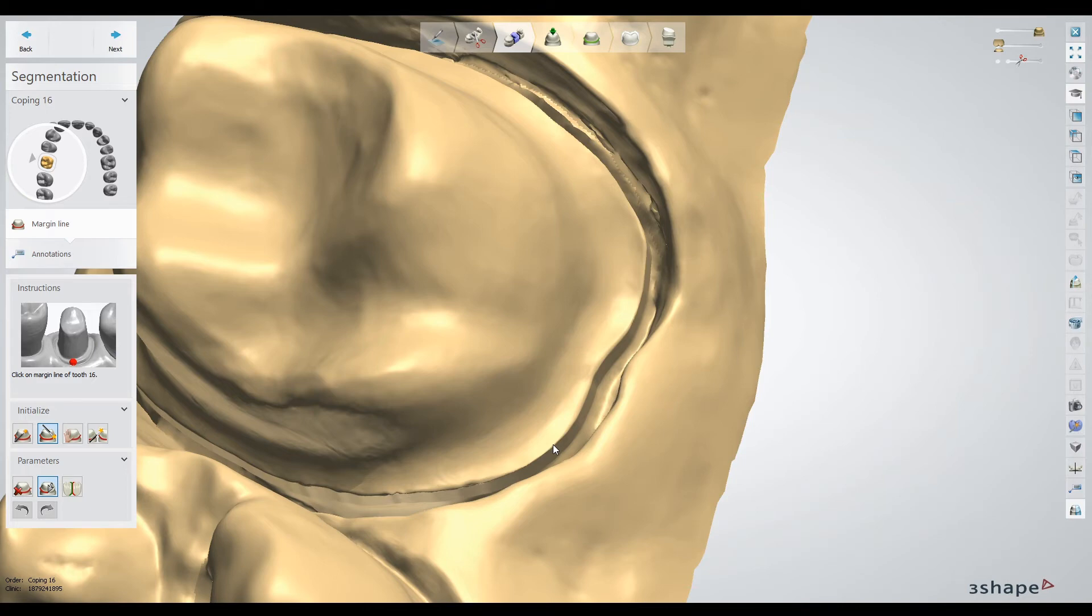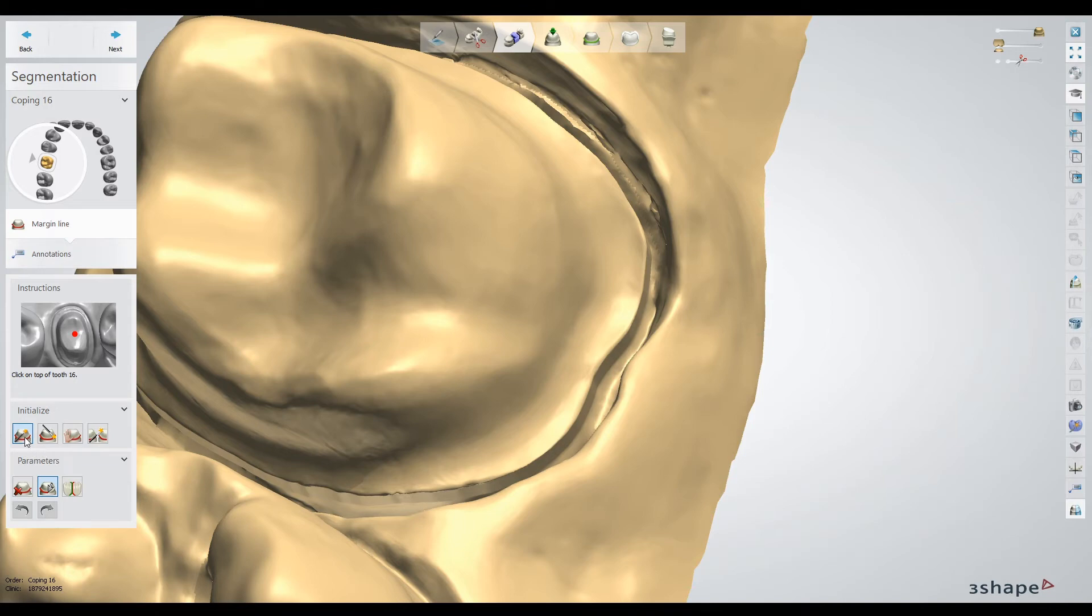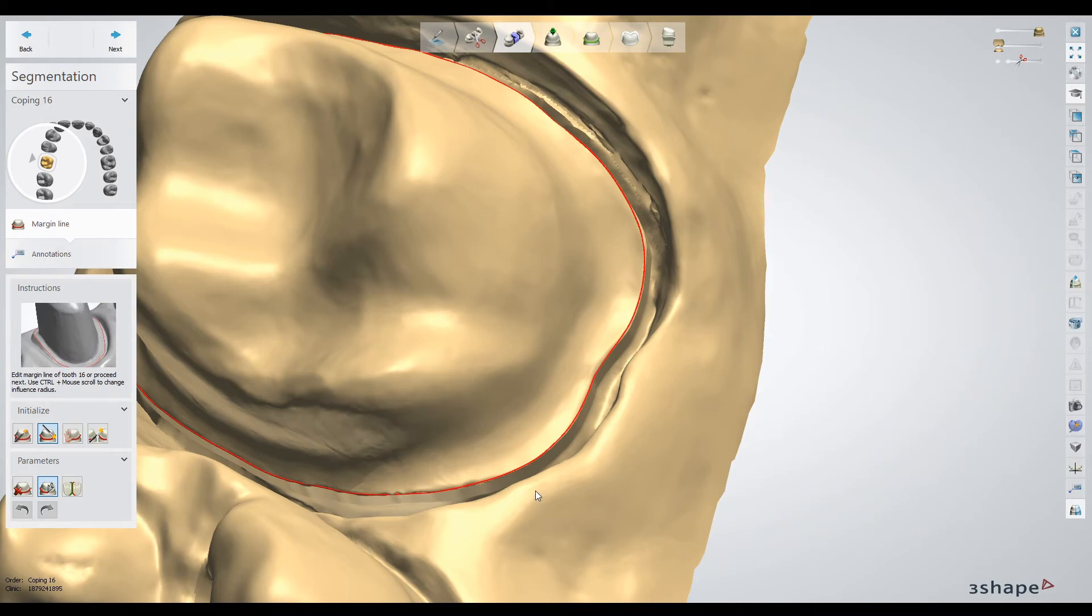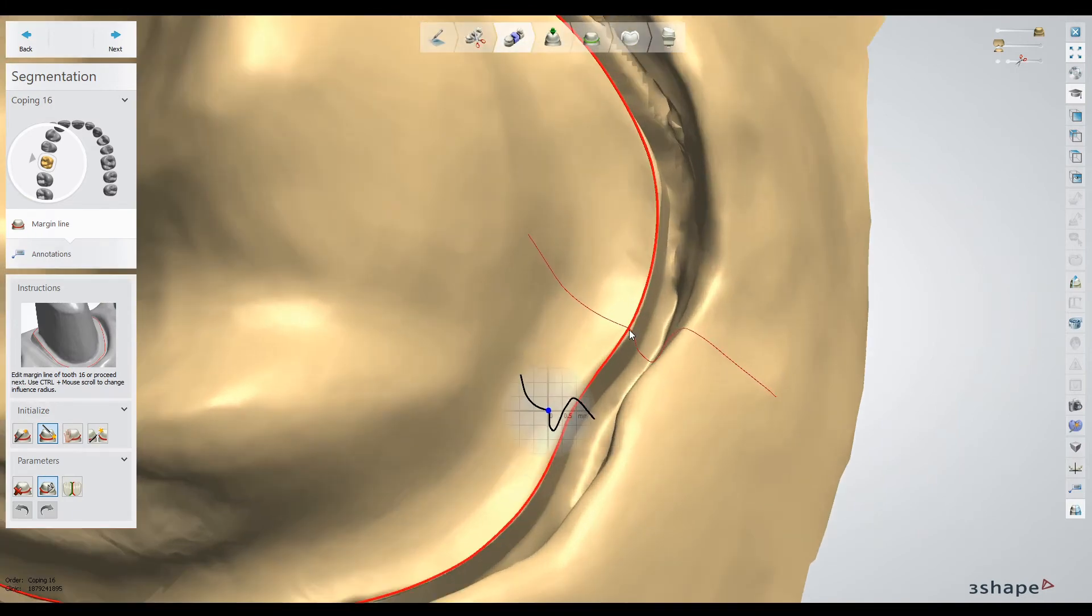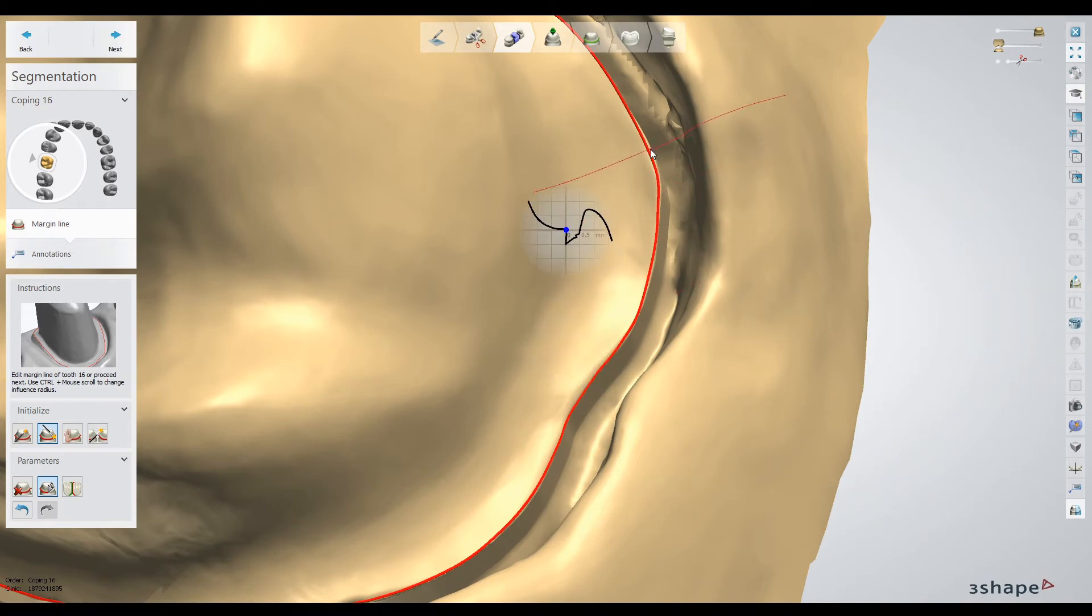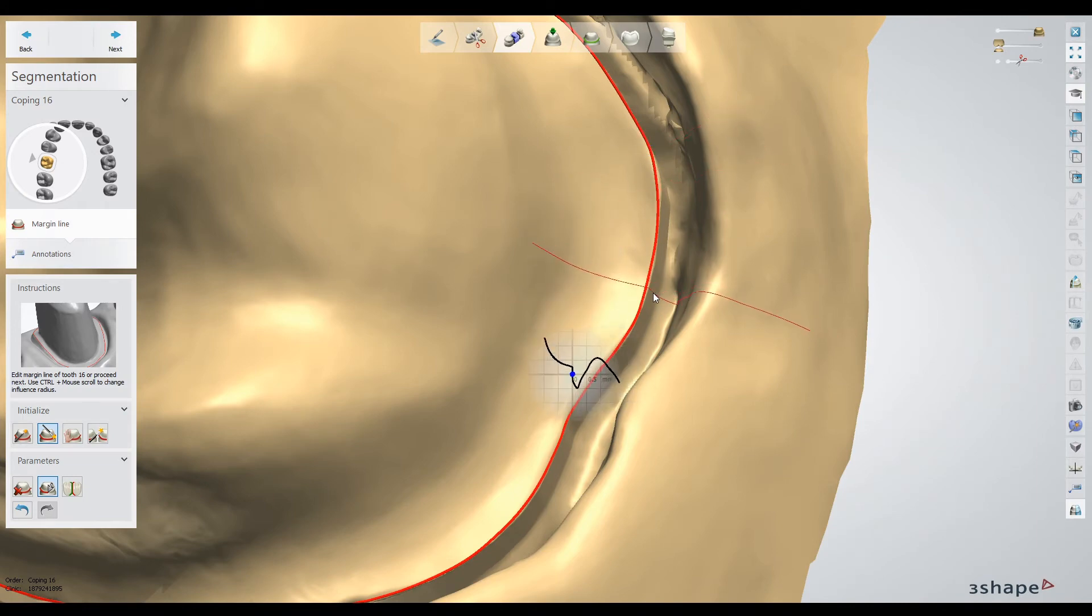Depending on how you like to use the program, I just like marking the margin here. One other trick: I do not like the automated margin tool on top. I actually like this button here on the left, which is just clicking on the margin. I generally find it does a much better job of guessing where that margin is. As you can see, this is obviously a pretty ideal case, but it does a much better job of guessing that margin line. That's it for design—just work through design like normal, design a restoration and everything else, and then I'll pick this back up in model building.